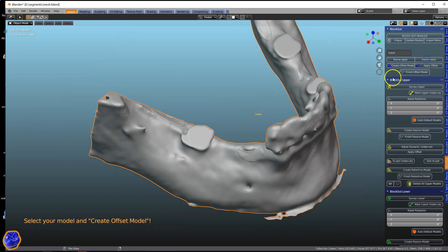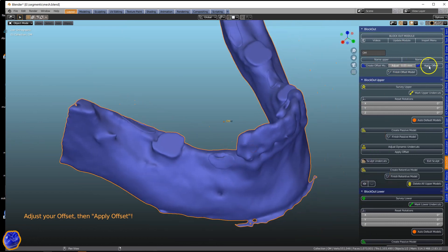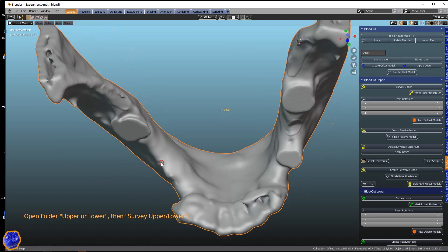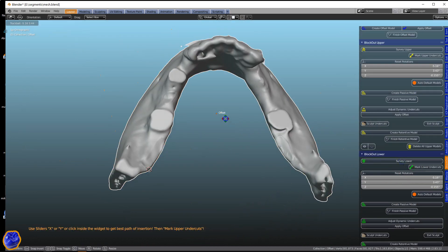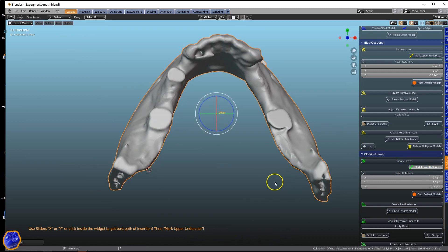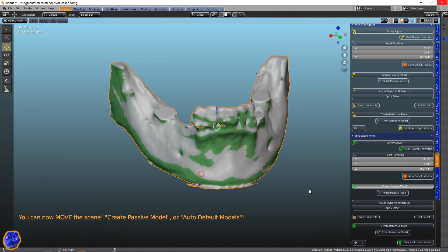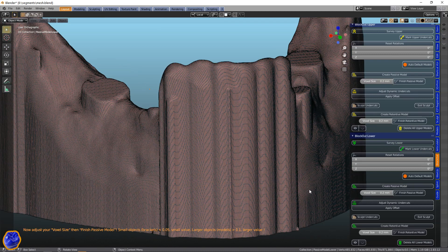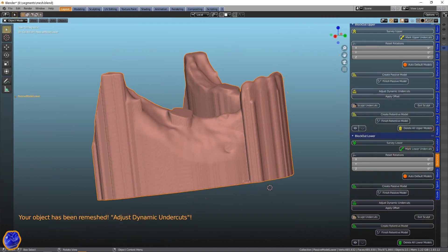Go to the block out module. Offset model. Now here I'm going to offset it a very very little — 0.05 — because we're not printing in regular material. We would be printing out of metal, so we're looking at tighter tolerances. So now we're going to block it out, view the undercuts, and then we're going to make a passive model. You don't have to work on the passive model because these titanium meshes are a little bit flexible. In this video however, I'm going to be using that as my fitting surface.